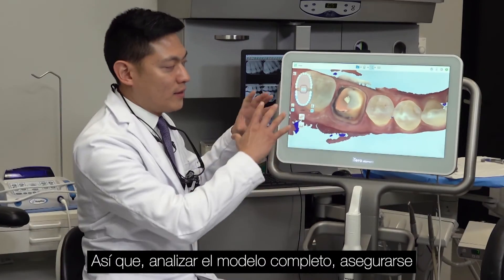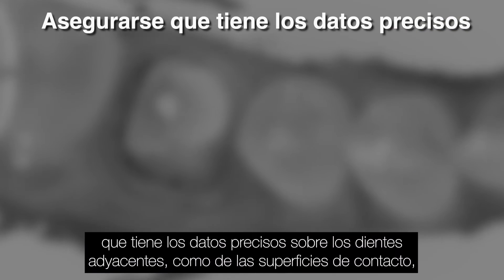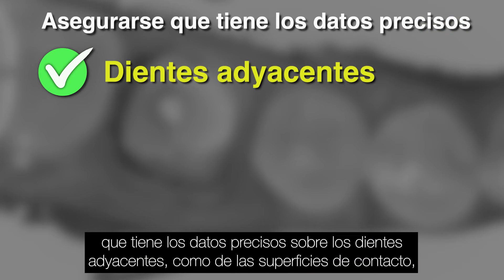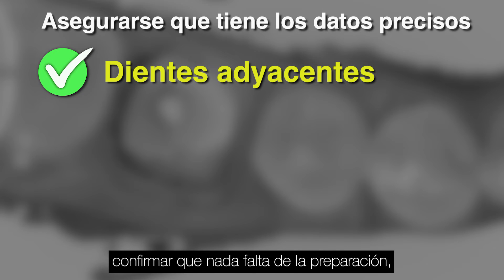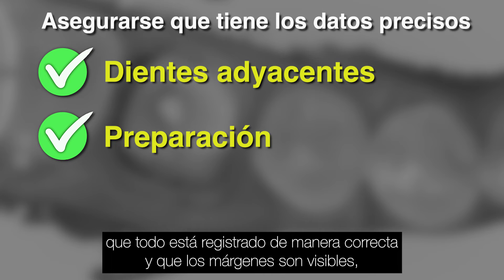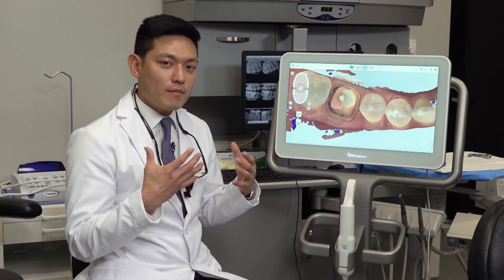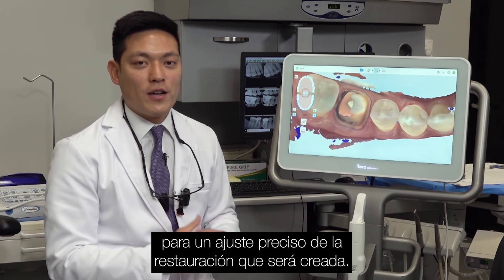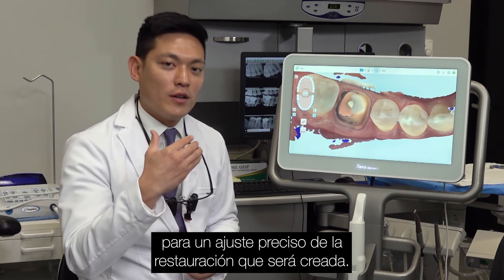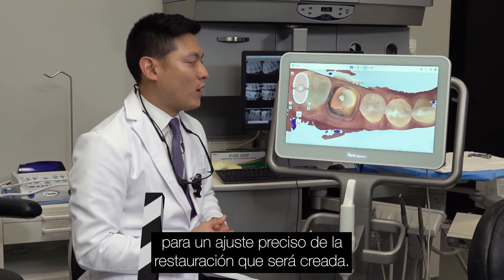So analyzing the entire model, making sure that you have accurate data points over the adjacent teeth, the contact surfaces of the adjacent teeth, and the entire preparation — nothing's missing, everything is filled in correctly, and the margins are visible. That's how you can ensure that your prep model is accurate enough for a precise fitting restoration to be created on it.